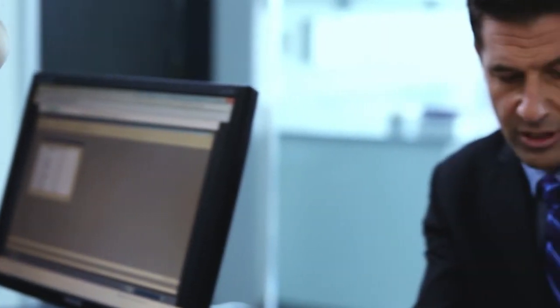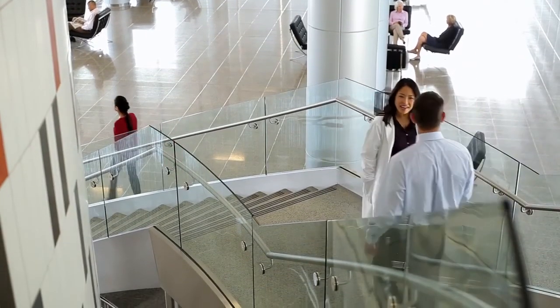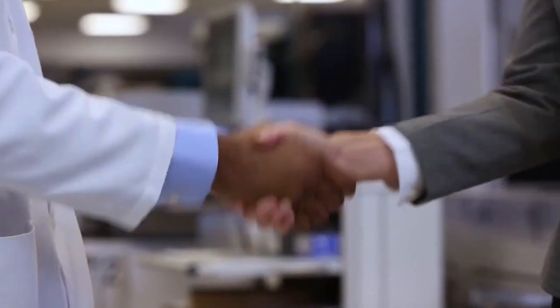Siemens Healthineers works with you to help your laboratory run at peak performance while simultaneously improving patient care. As a trusted partner we provide the people, tools, and best practices that enable the laboratory to succeed and thrive.